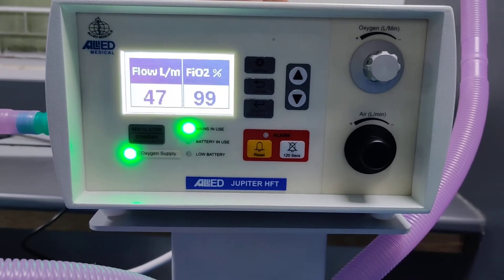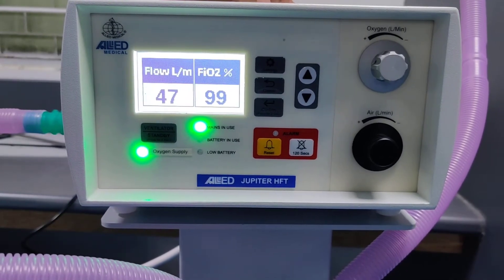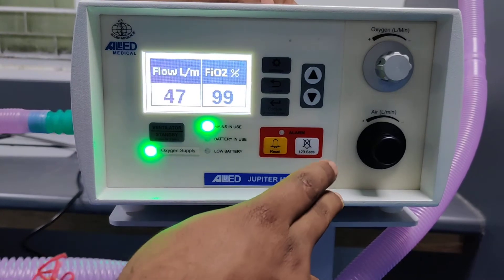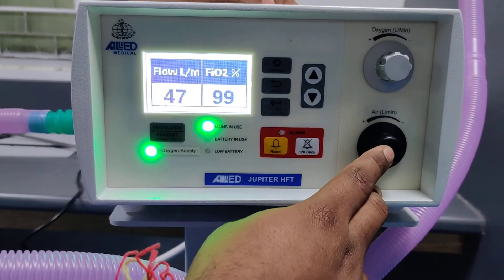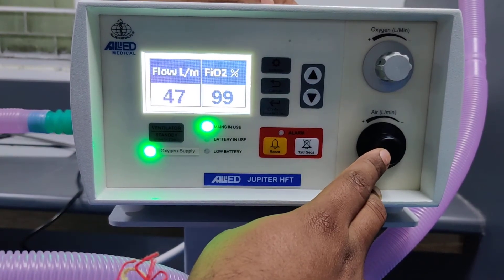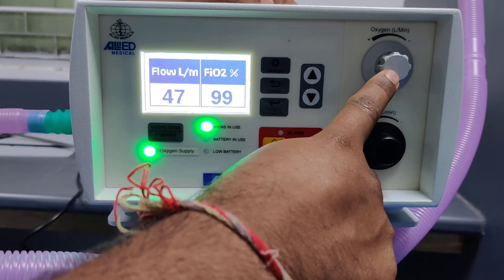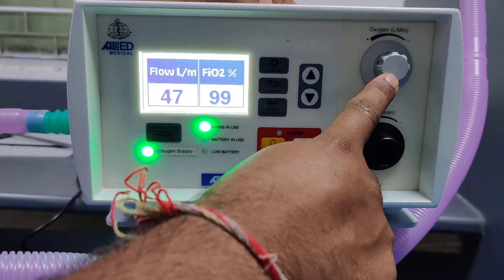For setting the air flow you use the knob in black color, and for setting the oxygen concentration you use the knob in white color.